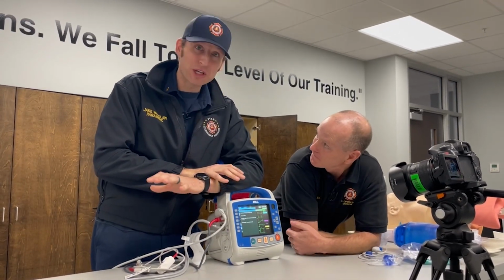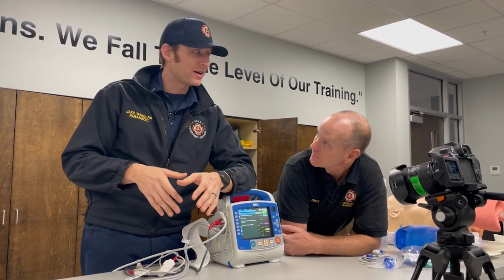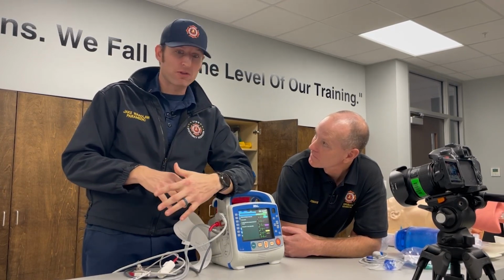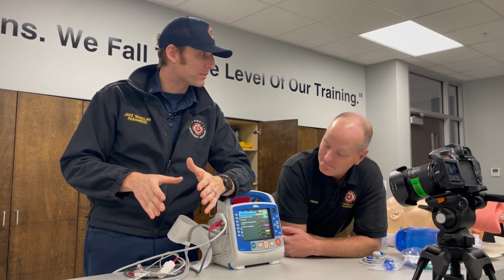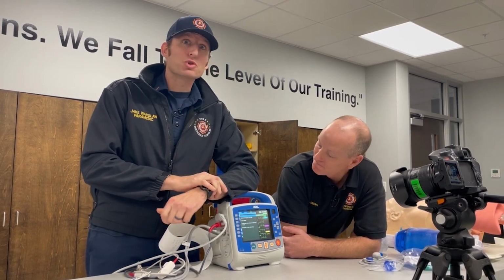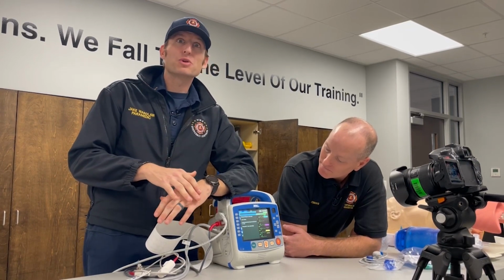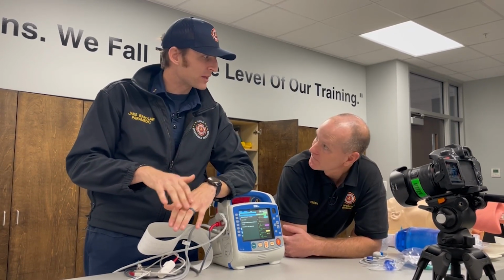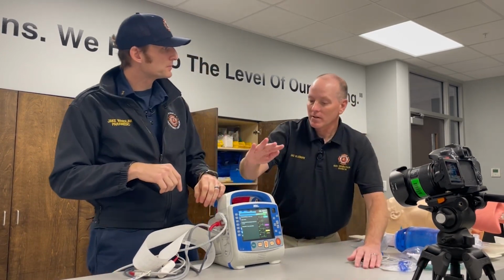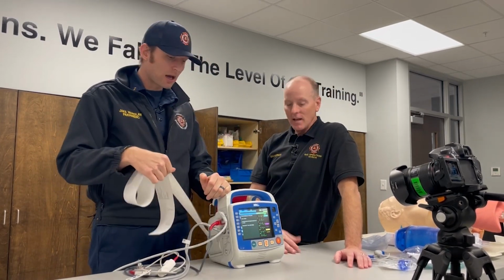I will tell you too, I've had a career span of two different monitors. I've had the LifePak and I've had the Zoll. Even BLS, ALS, I'm sure everybody's heard that there's good and bad between both of them. This is probably one of the best features on this monitor. Totally is. You could truly see a side-by-side of where the patient was to where they are. You can also get all the parameters and criteria of that 12 lead on the screen as well. That's right. We can actually see what the MI looked like and what they currently are, to see if our treatments are working.